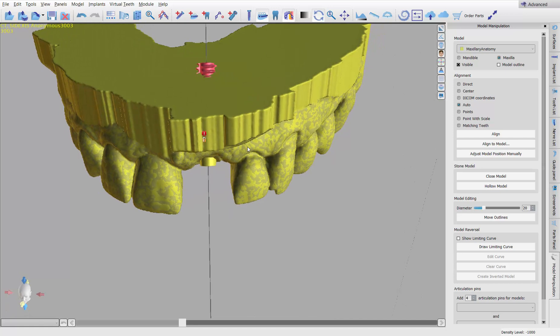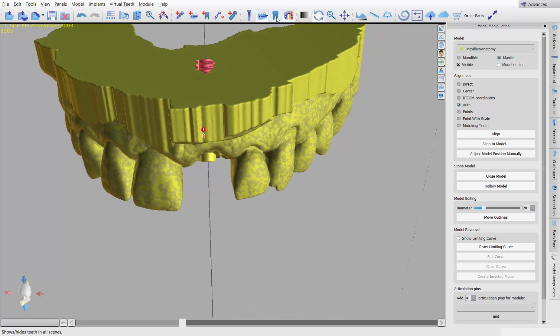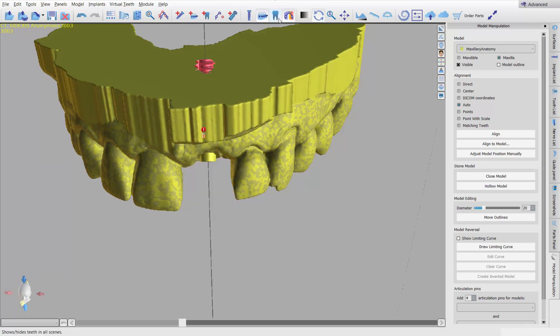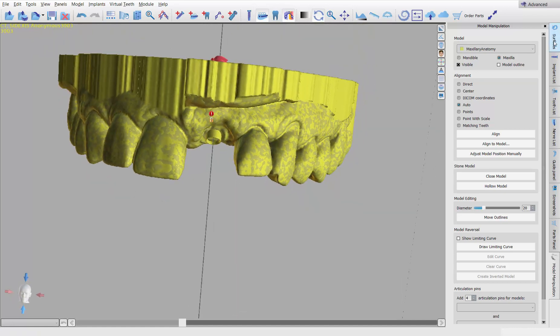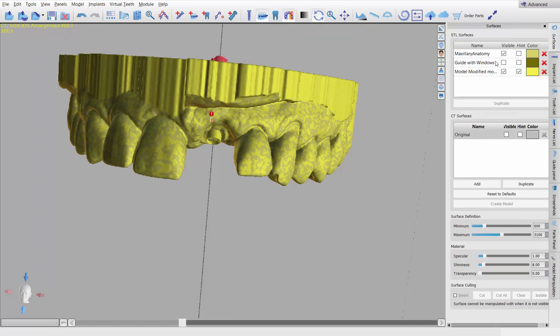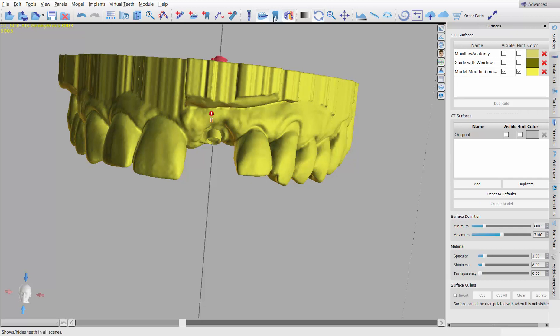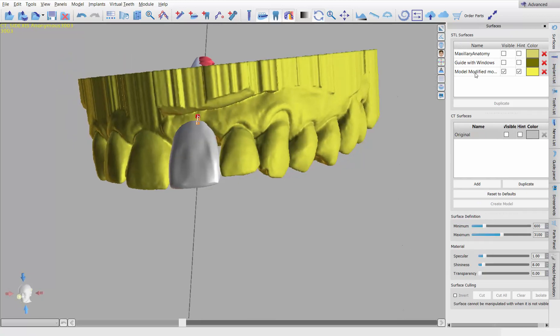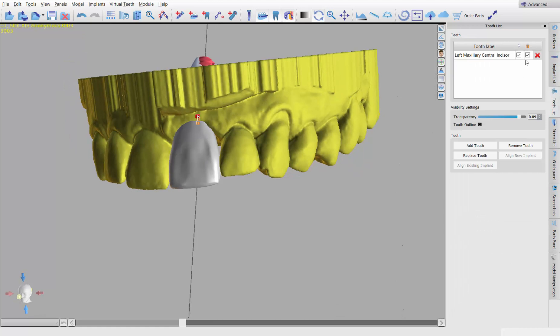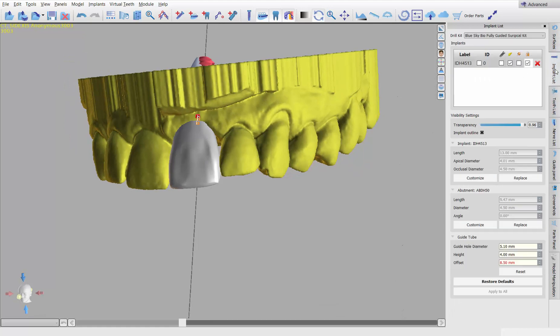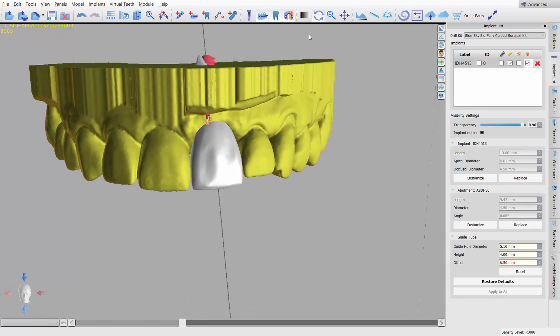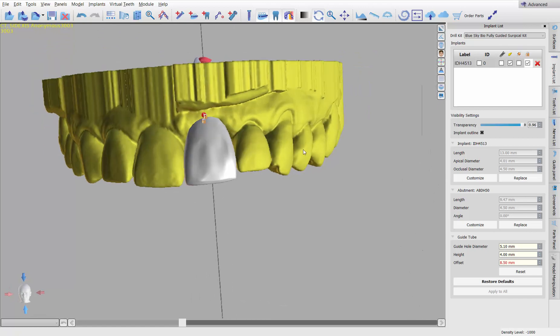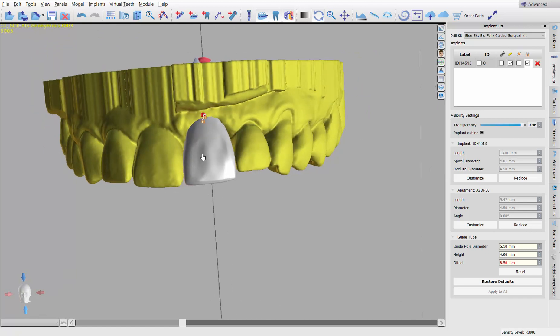Looks like the tooth sticks out of it. That will have a play a small role in the future, but that's not a big deal. So let's go ahead and turn off the original model. So we've got the tooth, the model is visible. It's checked. The tooth is obviously visible and the implant, the only thing that's checked is the abutment. Okay. So we're done. We're done with Blue Sky Plan. We need the model, the tooth and the abutment.